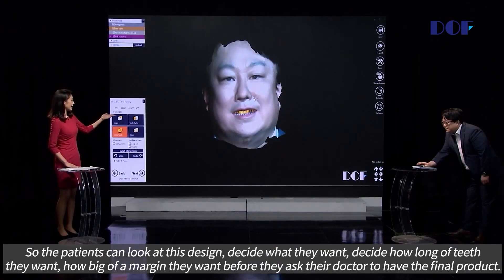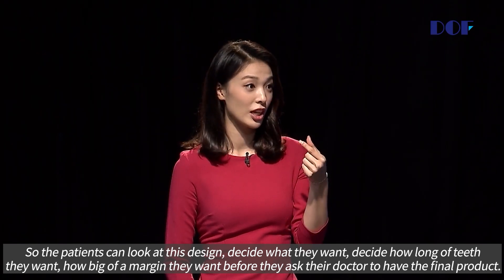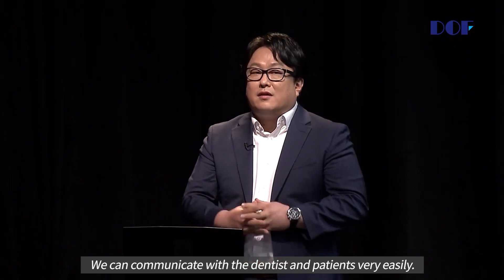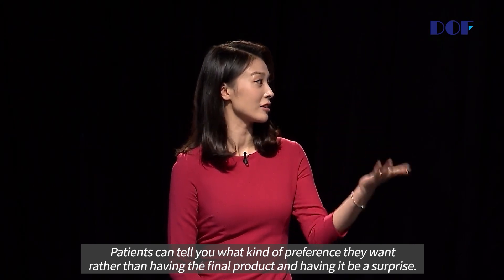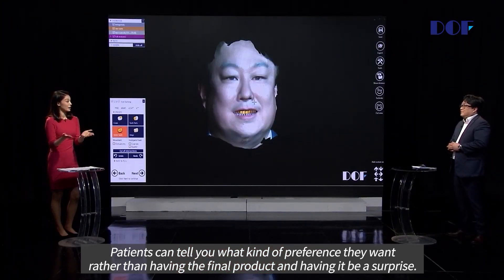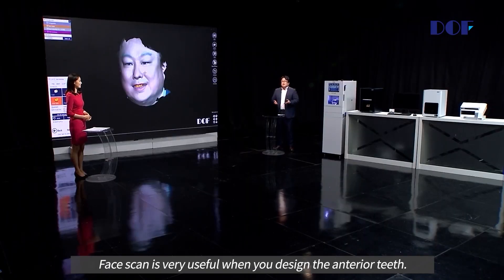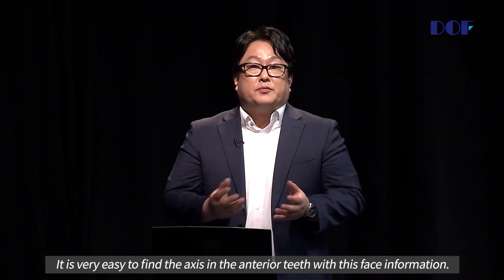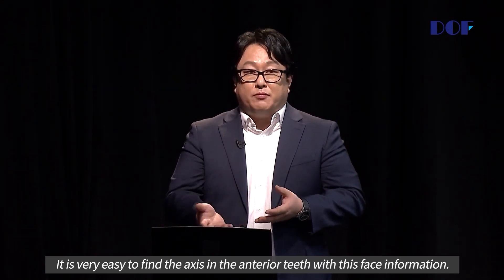So the patient can look at this design, decide what they want — how long the teeth should be, how big a margin they want — before asking their doctor for the final product. We can communicate with the dentist and patient very easily. The patients can tell you what kind of preference they want, rather than having the final product be a surprise. Yeah, they have that result on their phones. Face scan is very useful. When you design the anterior teeth, it is very easy to find the axis with the face information.